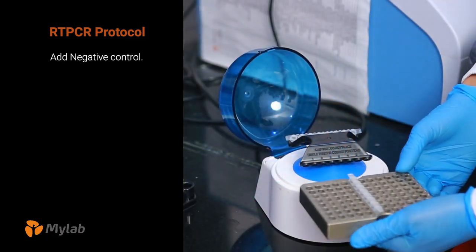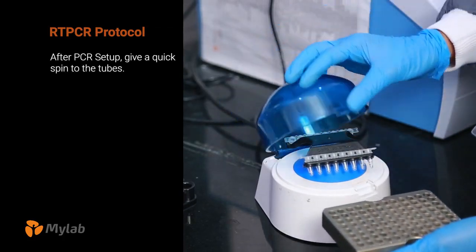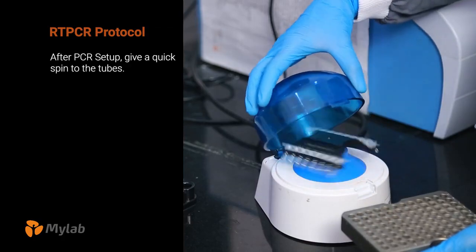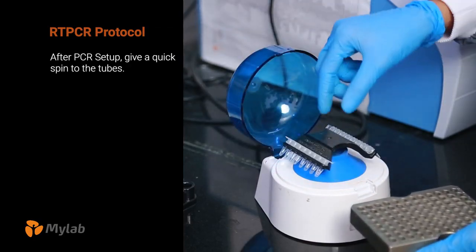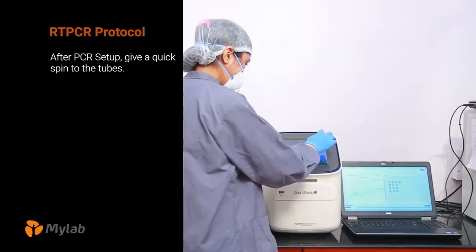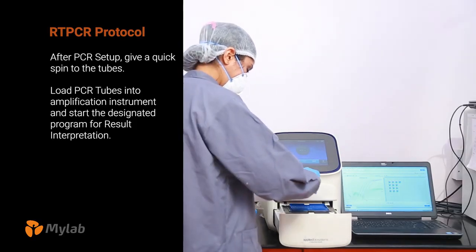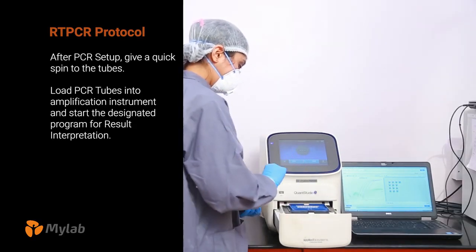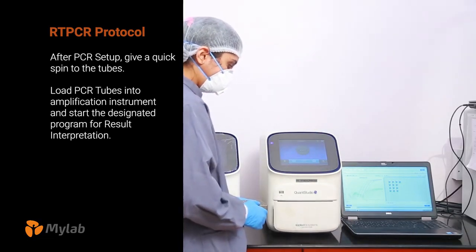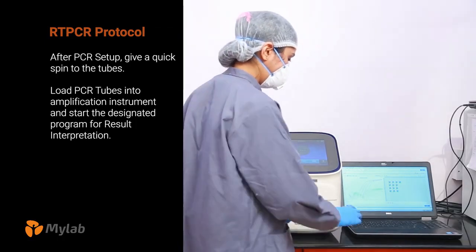After PCR setup, give a quick spin to the tubes. Load the PCR tubes into the amplification instrument and start the designated program for result interpretation.